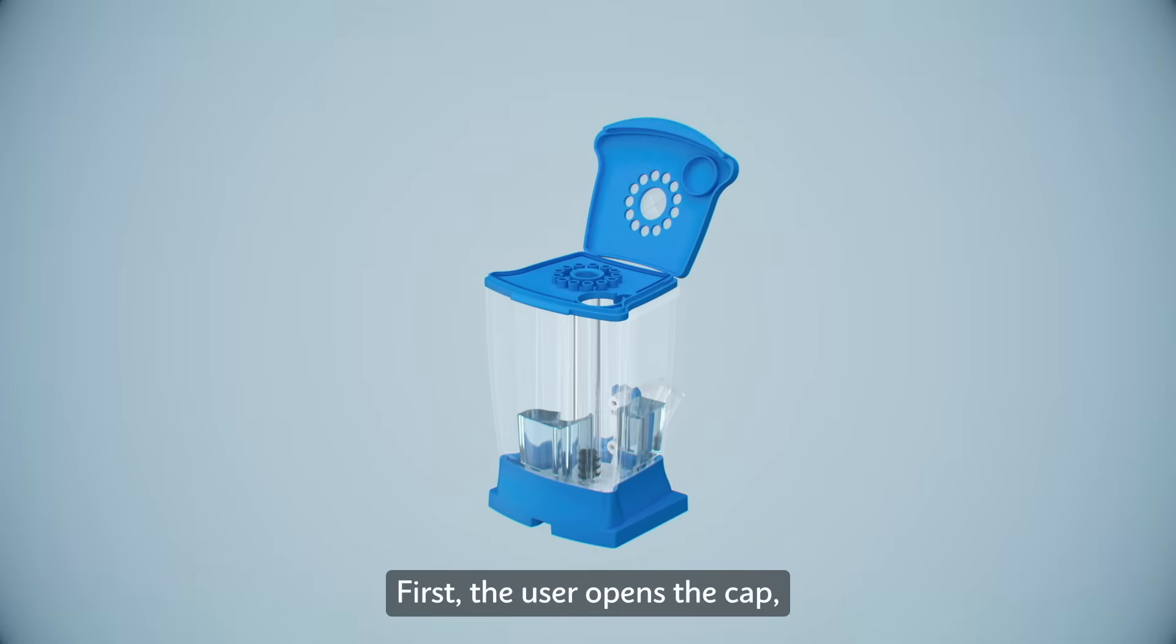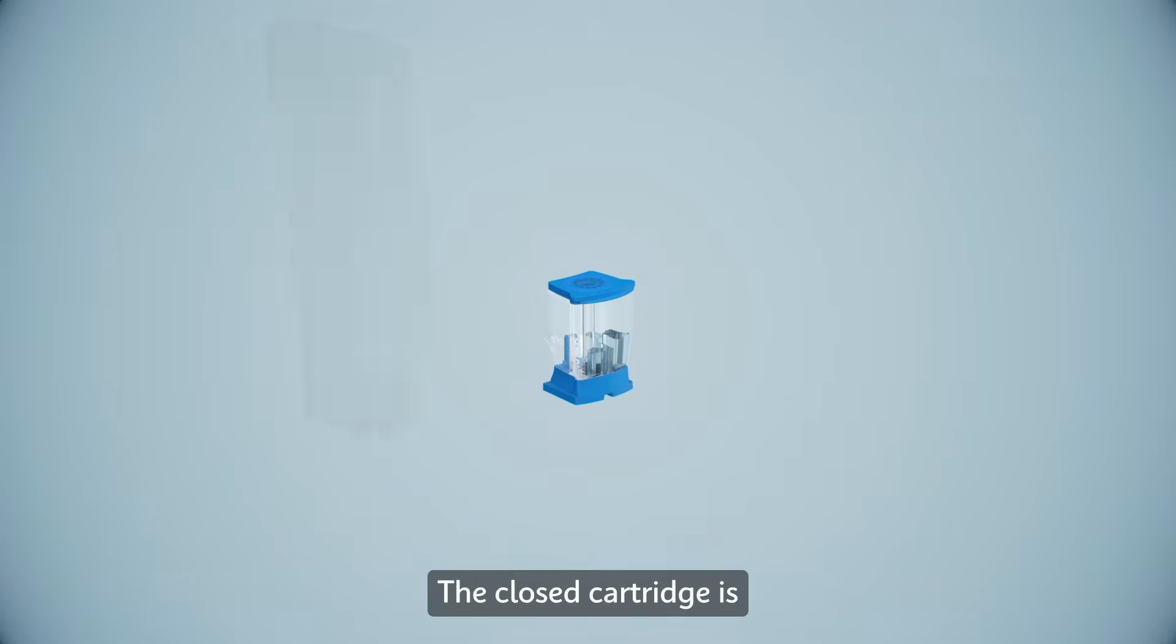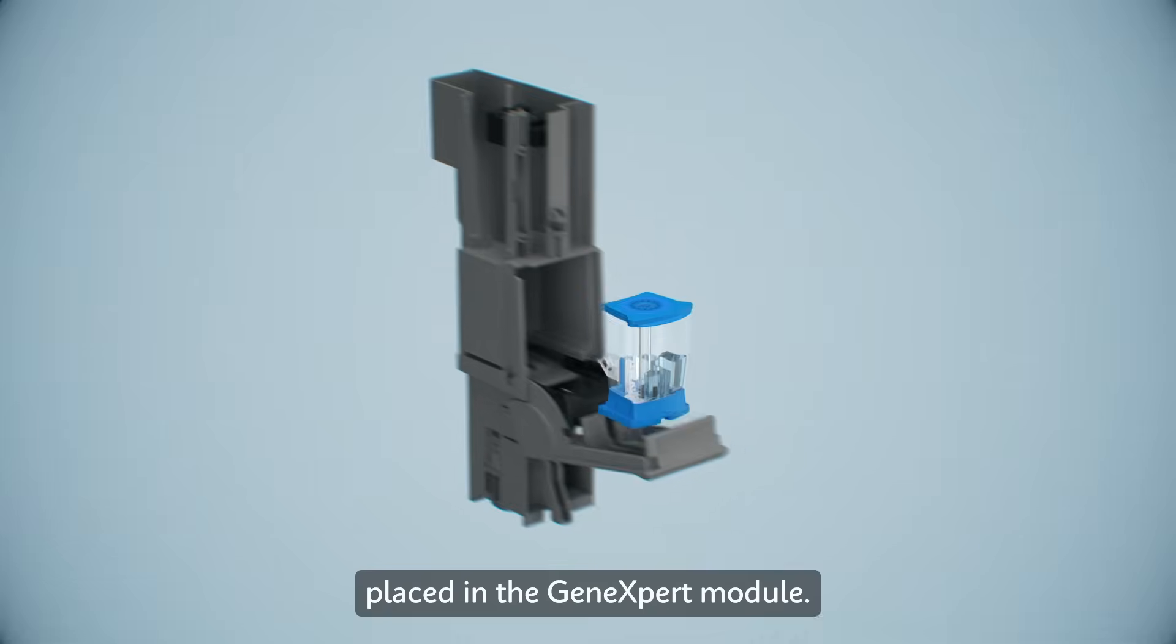First, the user opens the cap, adds the sample to be tested, and snaps the cap shut. The closed cartridge is placed in the GeneXpert module.